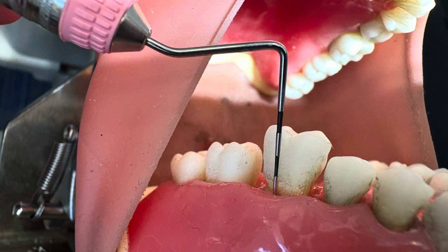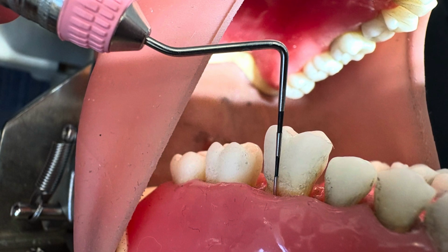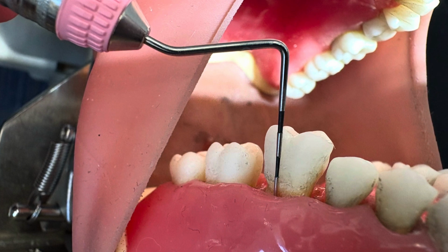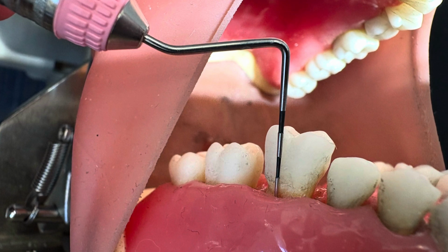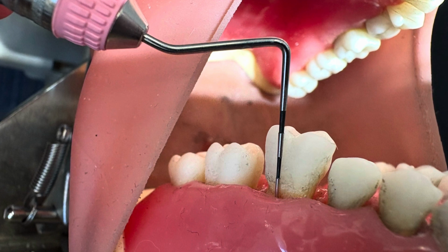Here's a photo I took in clinic of a Dexter, just pretending to measure the recession here. For recording the recession, you measure from the gingival margin up until the CEJ, where the cementum and the crown meet.